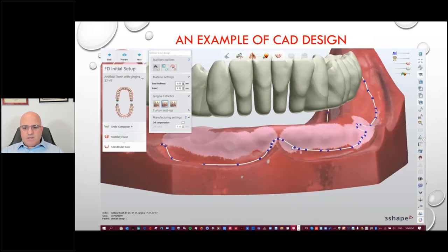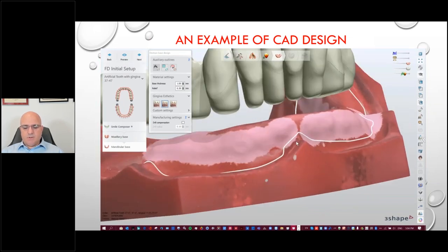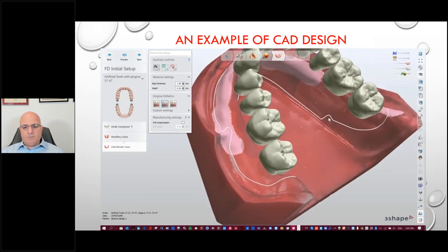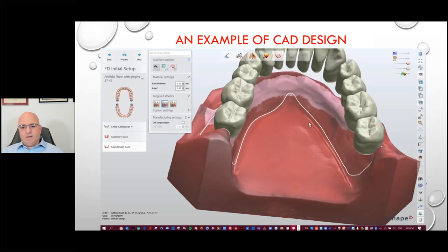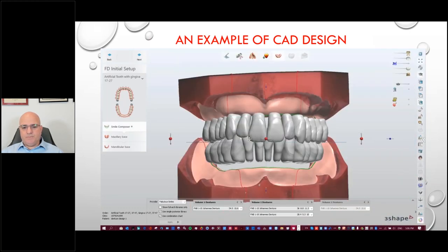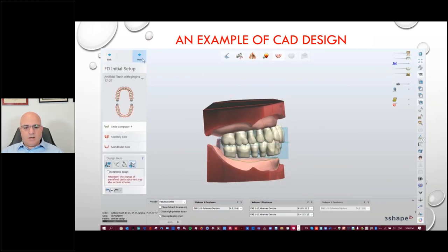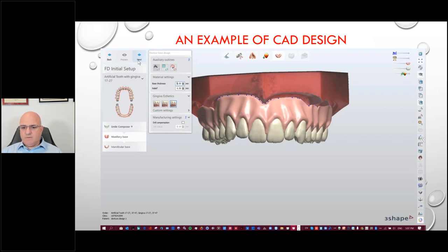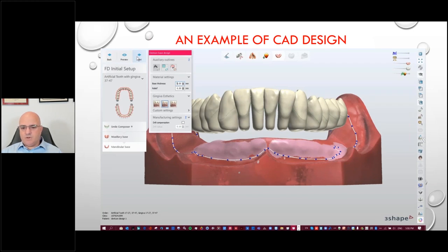Now designing the mandibular arch — same process. You can still change anything as you go through. Once you import your library and teeth, the planes are critical to make sure they're properly aligned so you can do equilibrating and look at the bite. Setting it up virtually is possible in the CAD software. These processes are meant for efficiency — allow the technology to do the bulk of the heavy lifting for you. If you find yourself doing the heavy lifting for the technology, something isn't right.